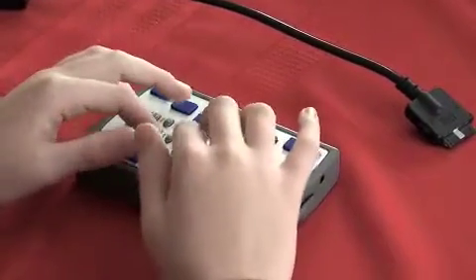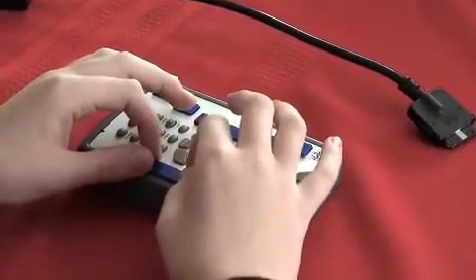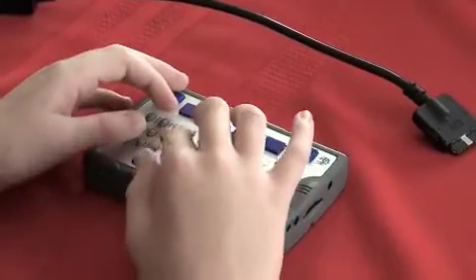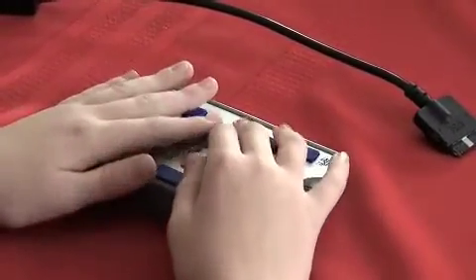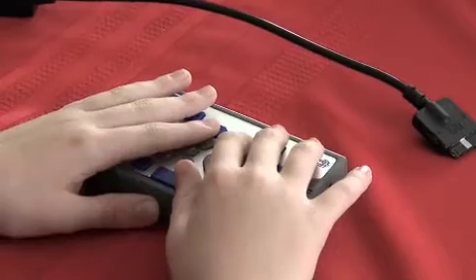The next key is the bigger key of the three. And it is the space bar. So you can just hit this and it'll space. Or if you're moving through menus, that'll allow you to use chords.